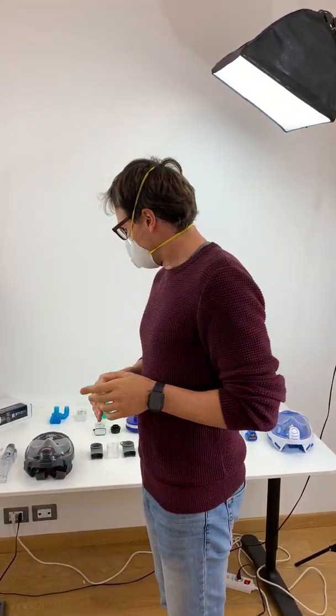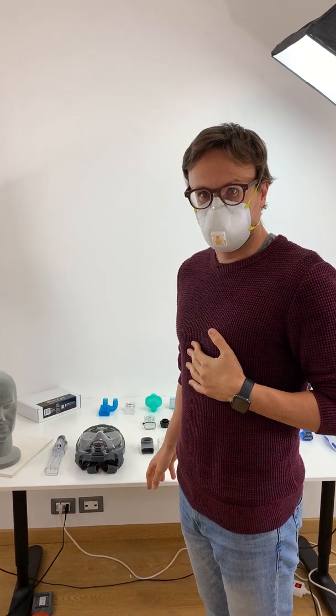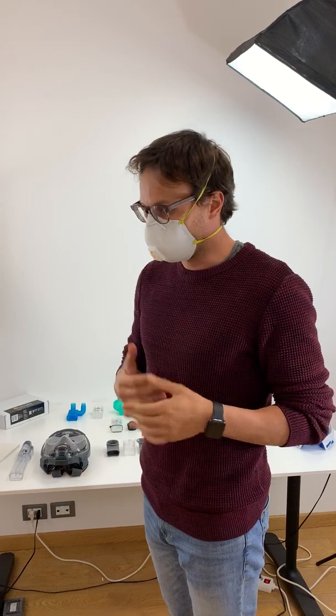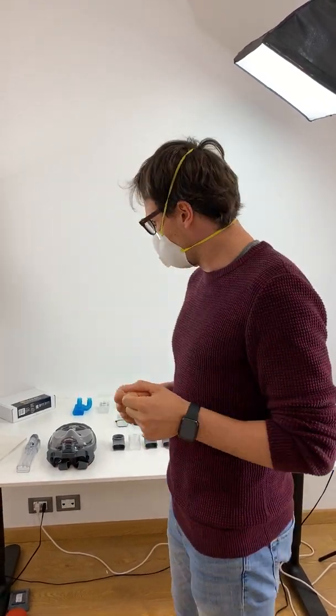We're here in Mestal Safety in Italy, the headquarters of Ocean Reef Group. We wanted to explain some of the innovations we put together regarding the COVID-19 emergency. You may have seen articles, but we'd like to go more in depth with the different parts, as it's not so easy to understand. This video should help. All the information is on the COVID-19 page on our website, oceanreefgroup.com/COVID-19.